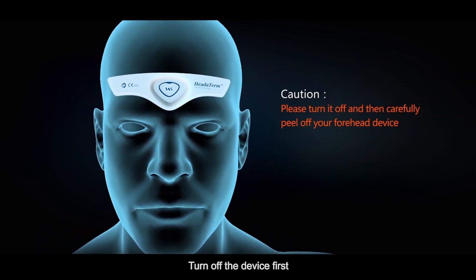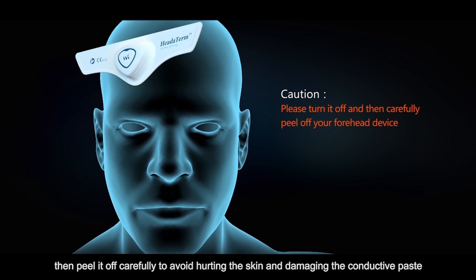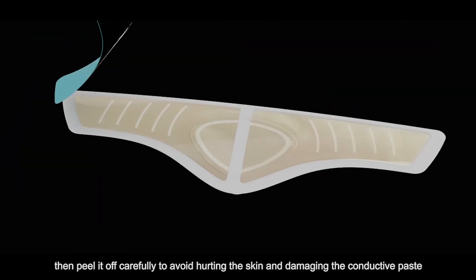Turn off the device first, then peel it off carefully to avoid hurting the skin and damaging the conductive paste.